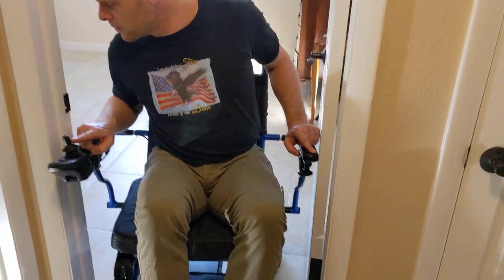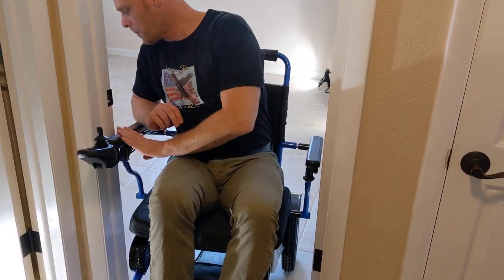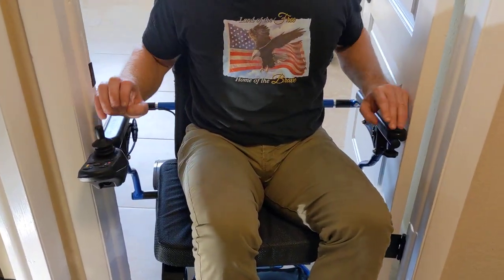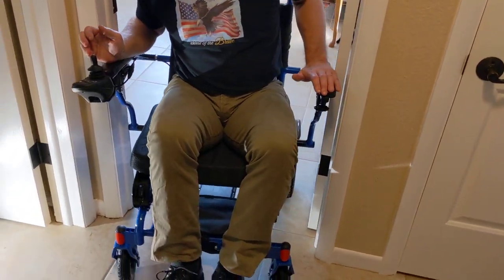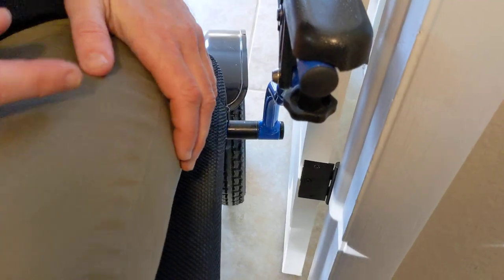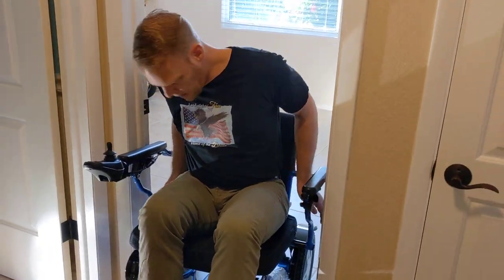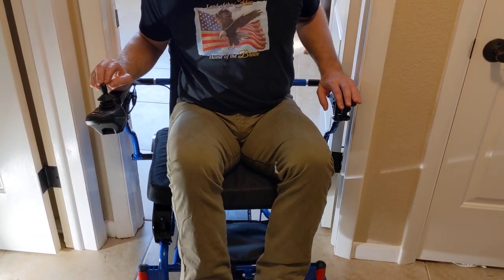Slightest little push. Now I'm lined up where I have literally no margin for error here. Little pulses — I've got this. I just got those guys through — not just the armrest, literally almost no space. People that were pilots would probably enjoy this challenge. There we go — I was able to get the chair through that doorway.